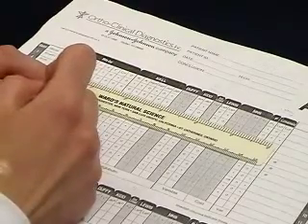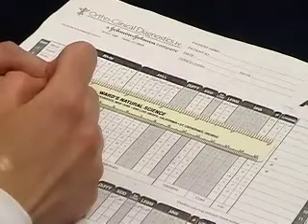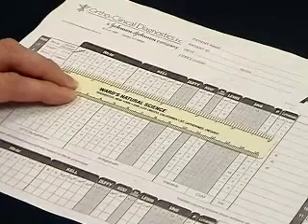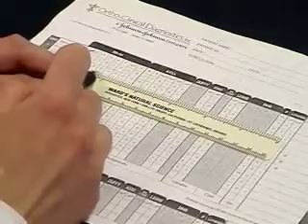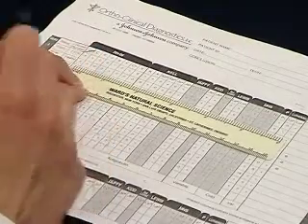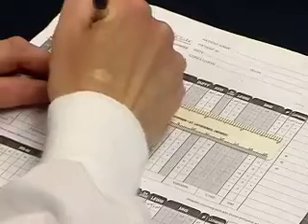The next positive we get to is big C. We need to make sure that the antigens are homozygously expressed on the cells, which means that they're present in a double dose. We look over with little c, which is its corresponding antigen, and realize that little c is not present. Therefore, big C is homozygous. You can only rule out using homozygous cells. In this case, we can eliminate big C.